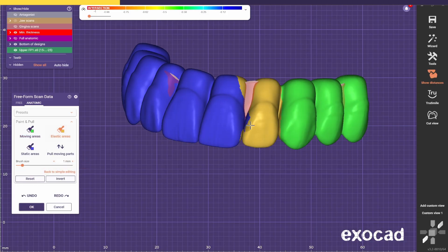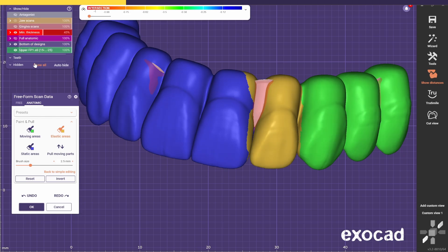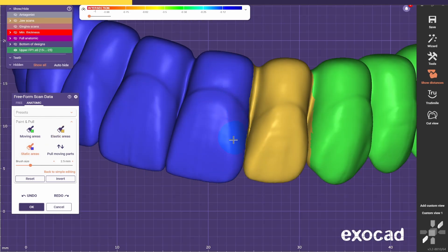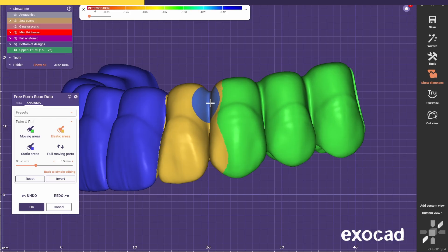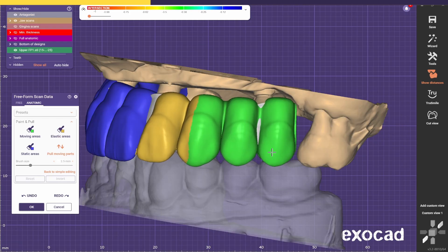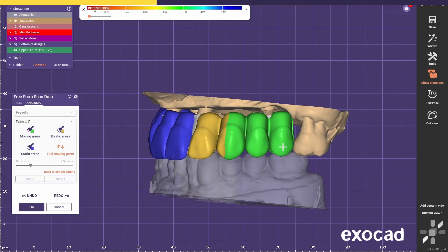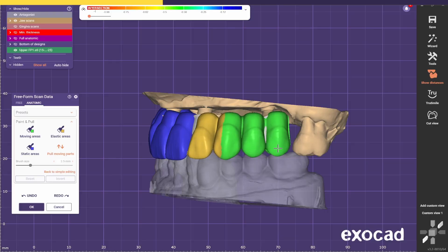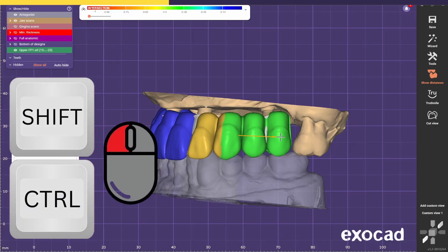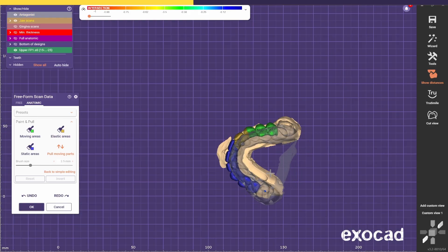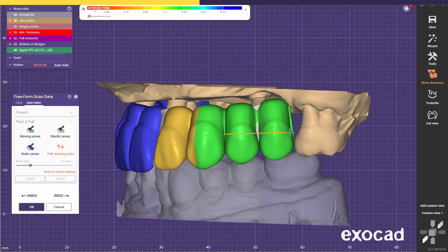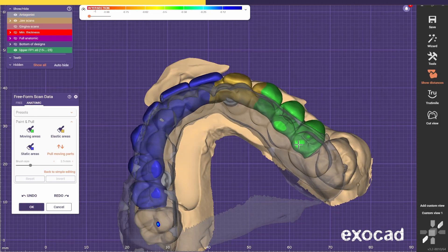We can go to Advanced Editing and paint in yellow the other parts we want to change as well. I'll try to maintain the centrals symmetrical so I don't want them to deform too much — I'll just paint a bit of the canine to make it deform a bit as well. At this stage we can just pull it out. If I pull all the way back, the lateral is going to be too distorted, so I pull just a bit to the distal. Then I press Ctrl-Shift so I can resize the green part and not rely only on the yellow part to stretch.